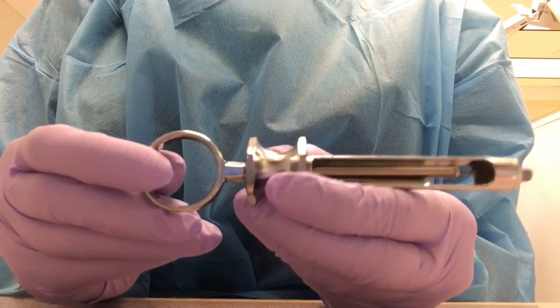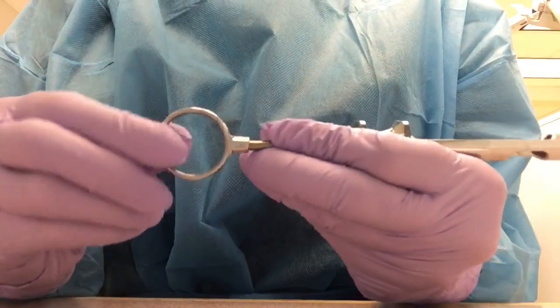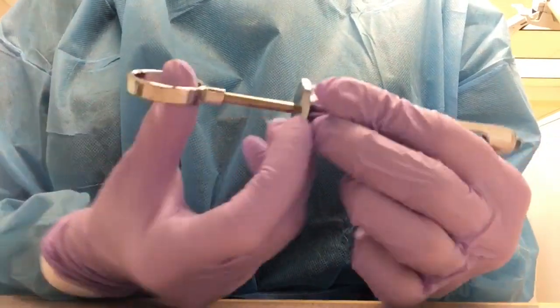When preparing to administer local anesthetic, you will first want to check that the thumb ring is secured tightly.